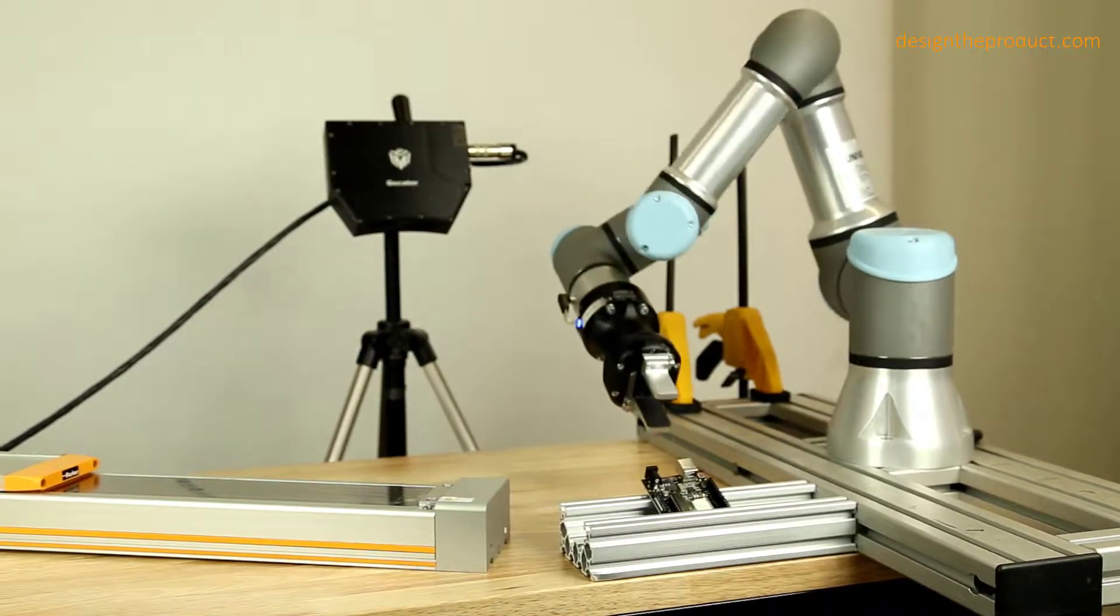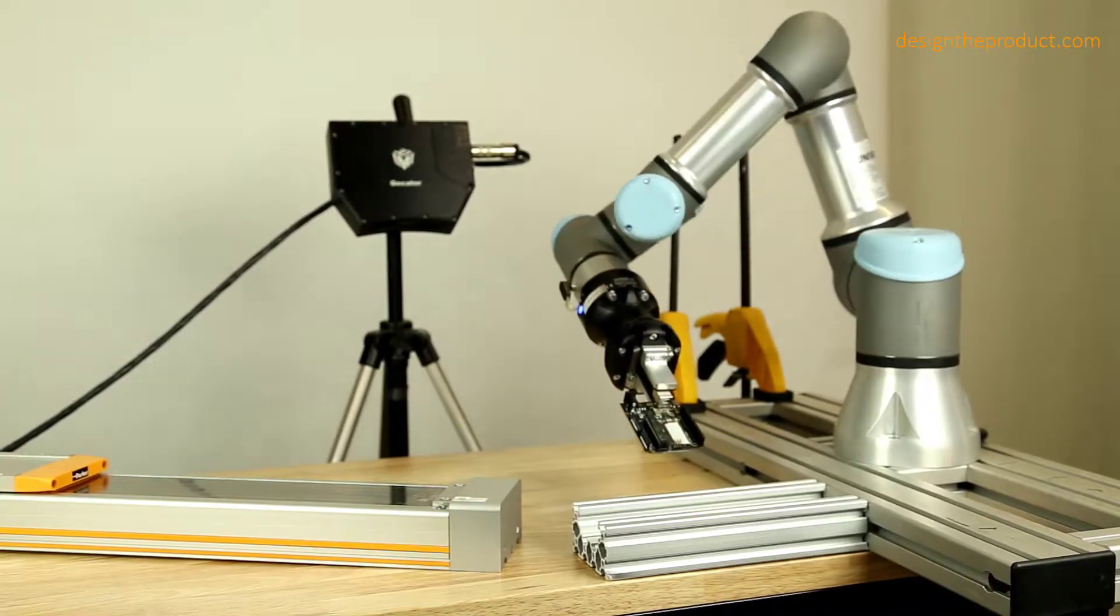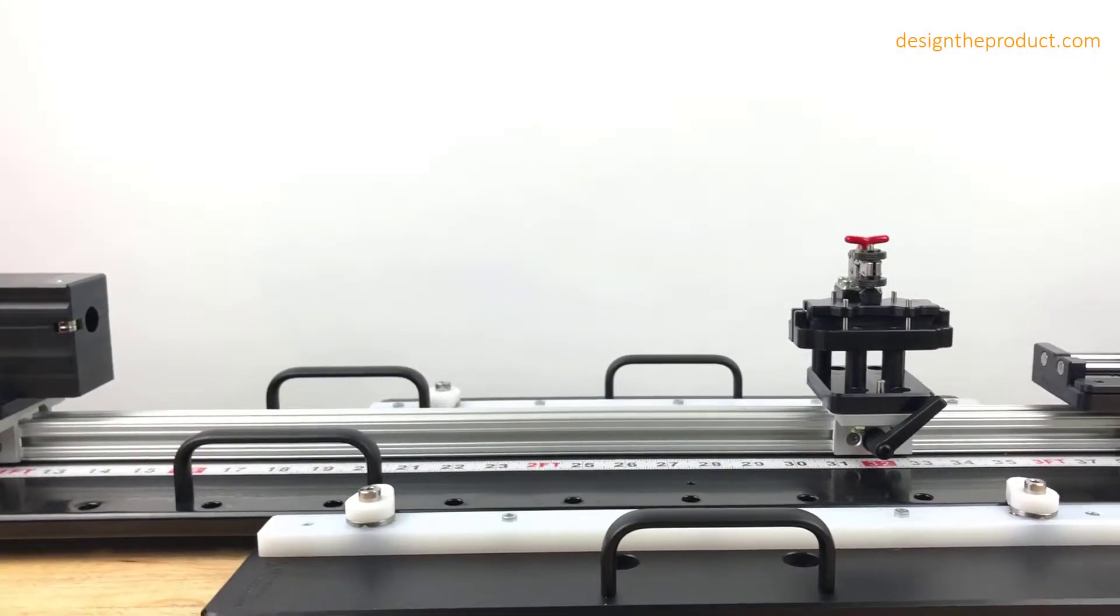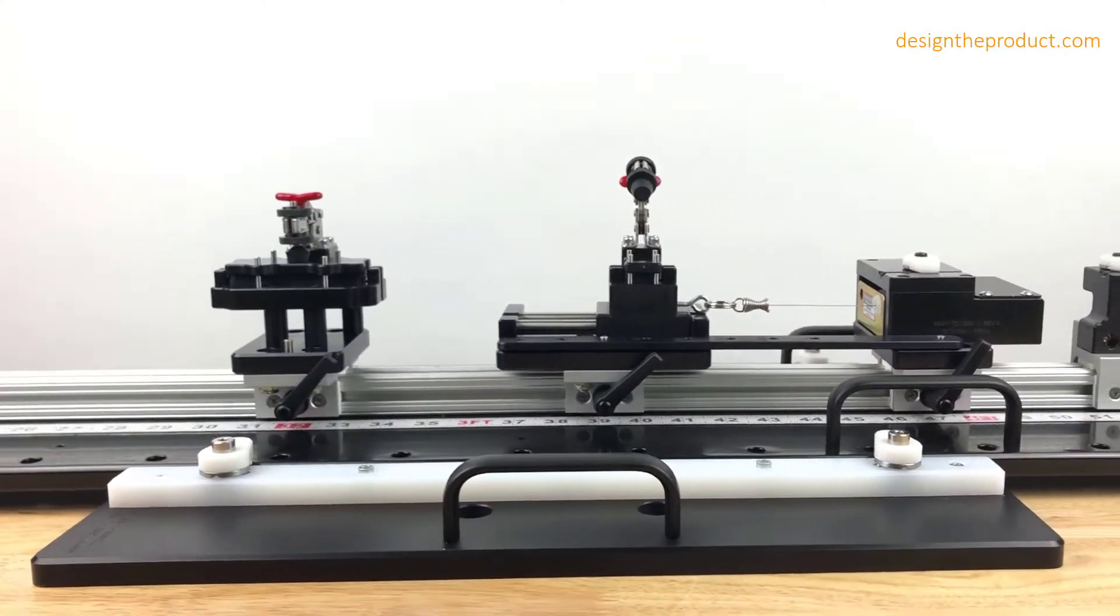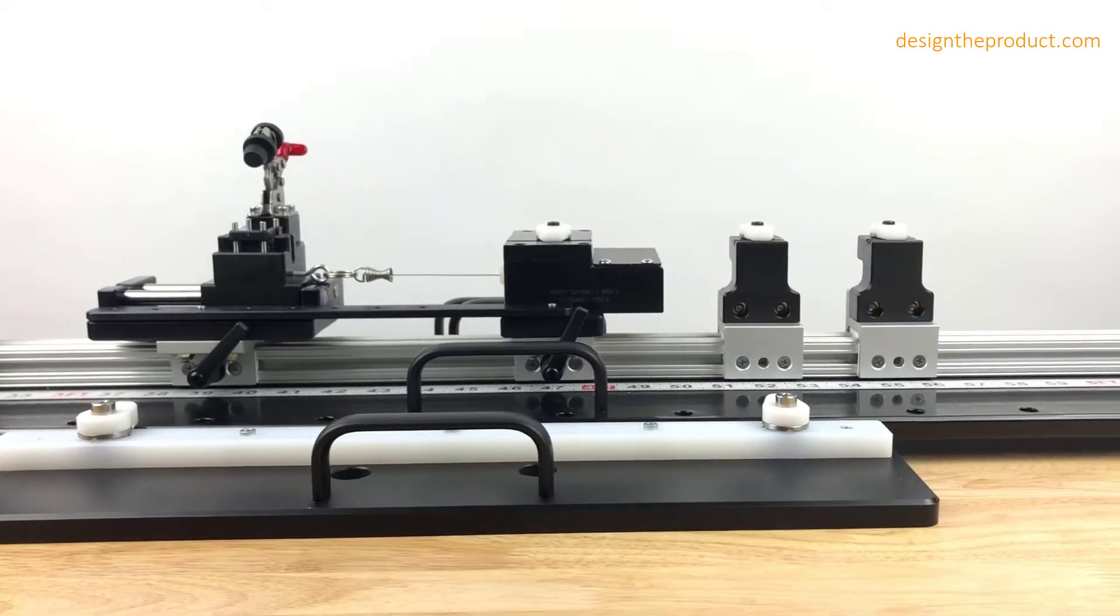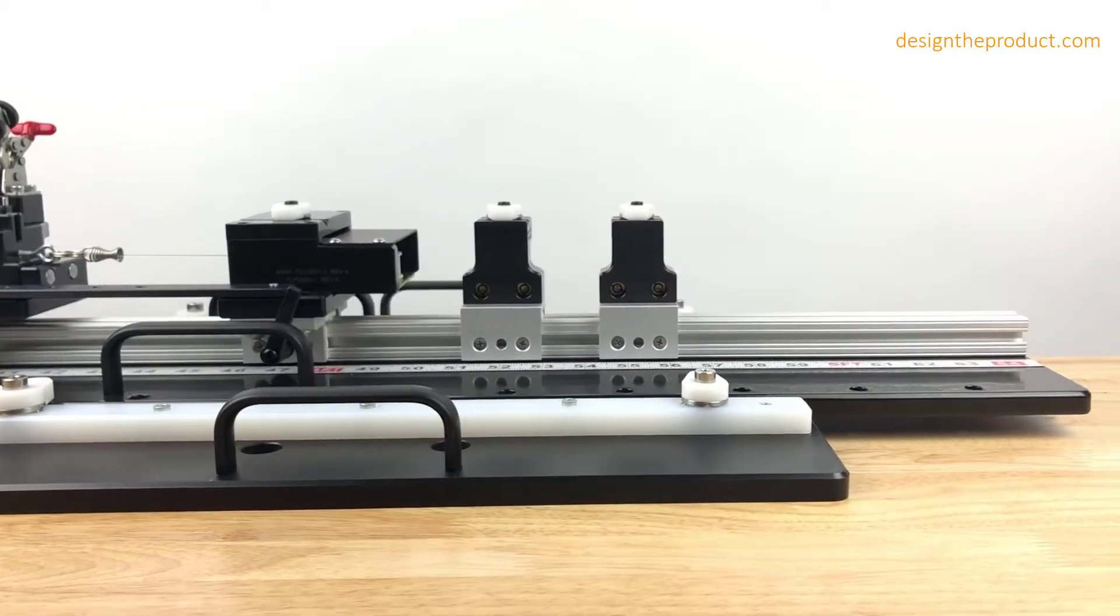I don't know of another product development firm that has built capabilities so specifically around creating test fixtures for medical device companies. And I wonder if your development has ever been delayed because of insufficient test equipment.